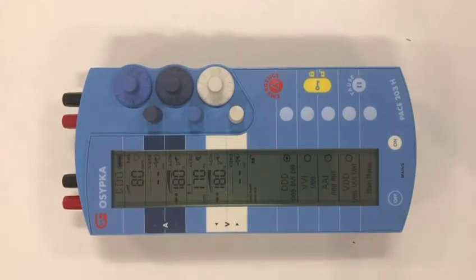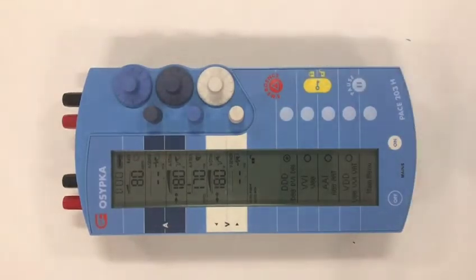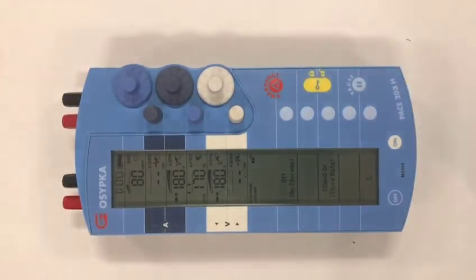The fourth thing is how do you turn the device off? To do this, press the yellow button to unlock, then press the off button and you will have a choice of two: one is standby, one is the completely off button. Standby is most useful when you're preparing the device pre-surgery and you want to set it up with a set of parameters and then turn the device off, knowing that when you turn it on, it will come up exactly as you left it. It's also useful to have it in standby when you're connected to the patient but don't actually need the pacemaker at the moment.